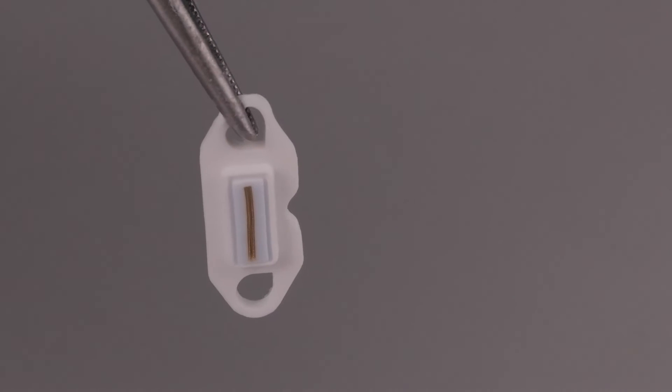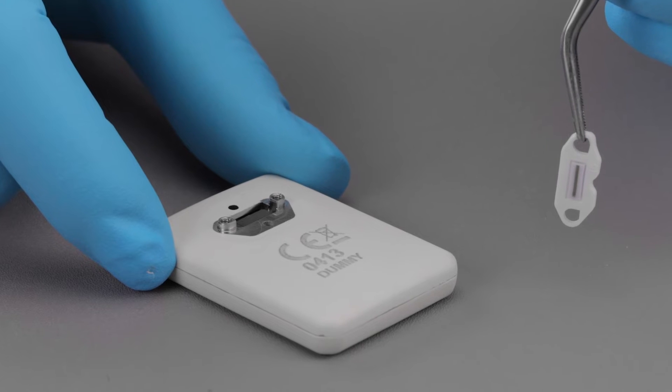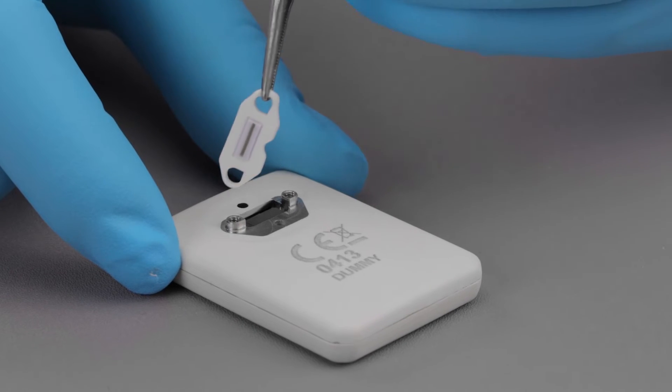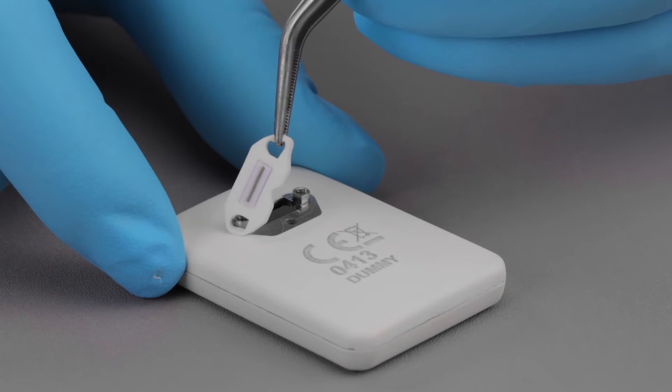For the purposes of this demonstration, we will be replacing a Schick 33 sensor with a new white elastomeric strip. Take a new white frame from the spare parts kit and carefully place it into position.